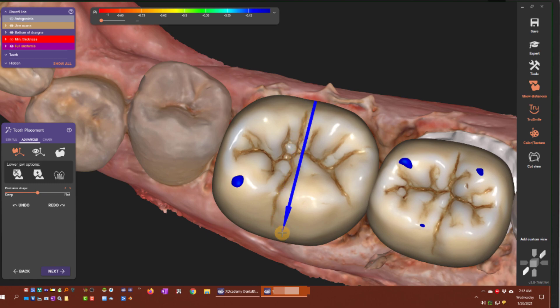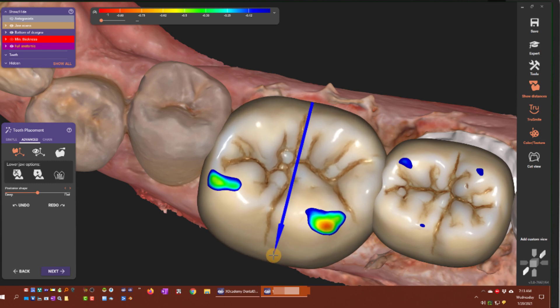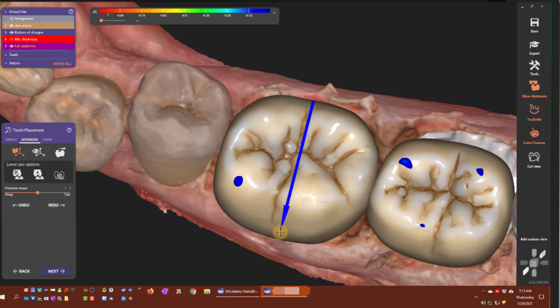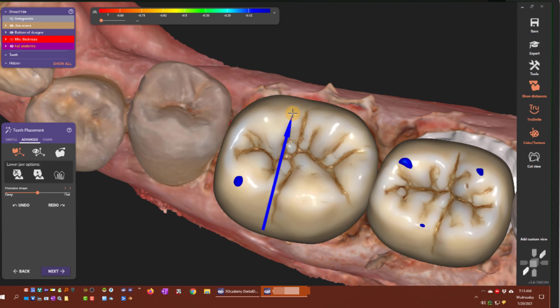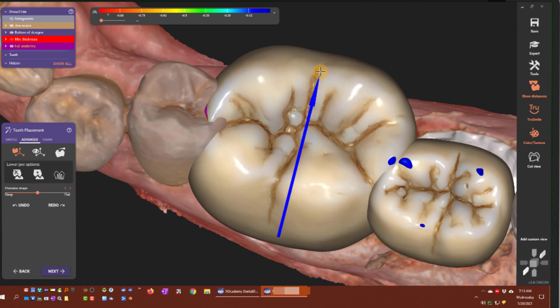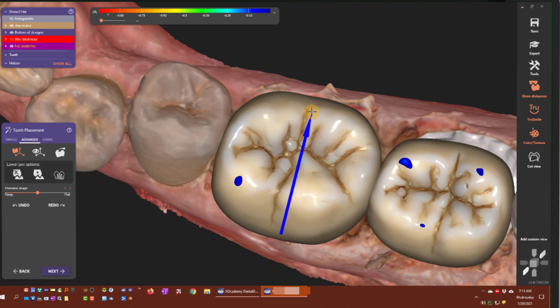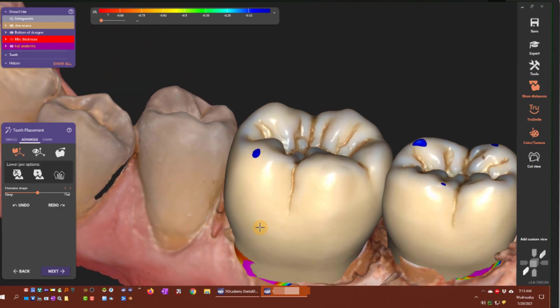The same thing goes for buccal-lingual: I leave the lingual contact there if I only want to scale buccally. And if I move toward the lingual, it's going to keep the buccal axis plane — it doesn't move lingually from the buccal. So that's the scaling option relative to the tooth axis.